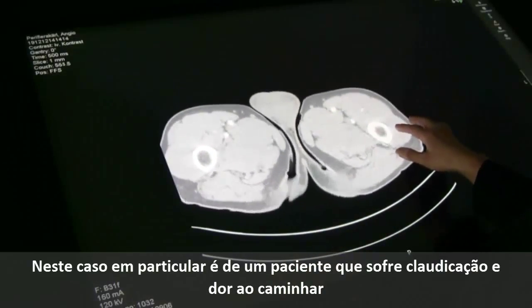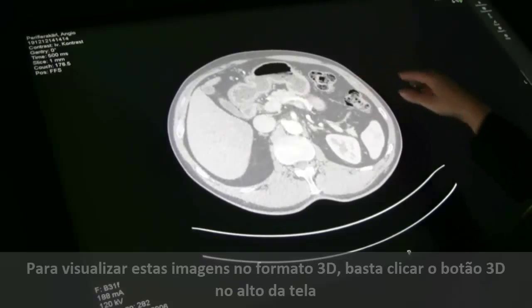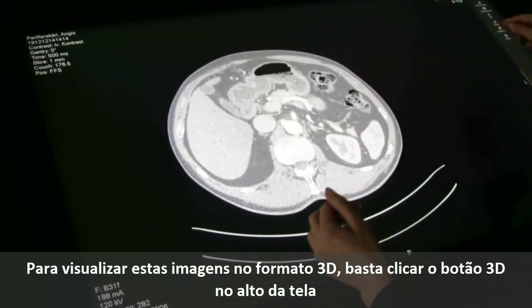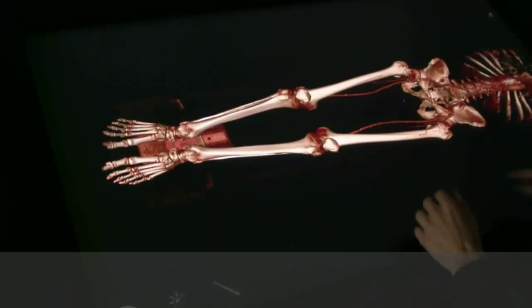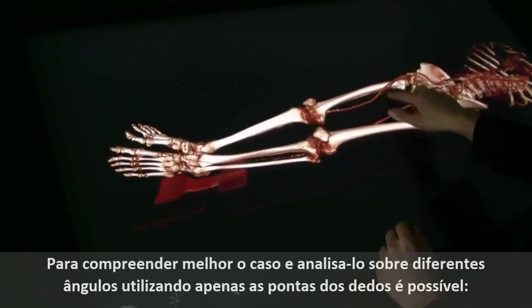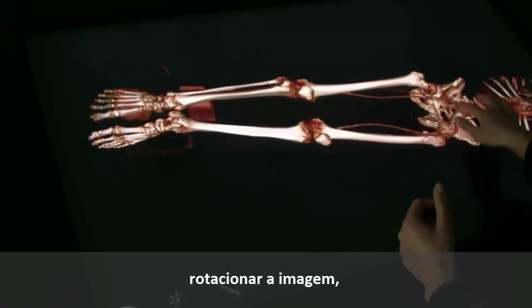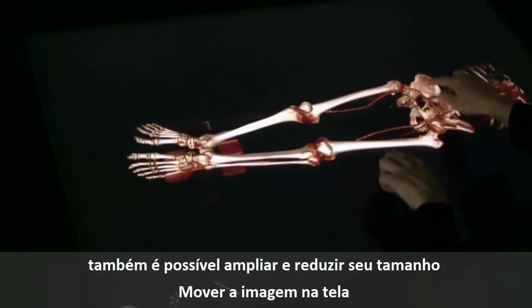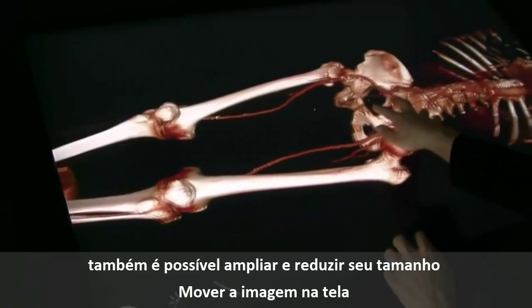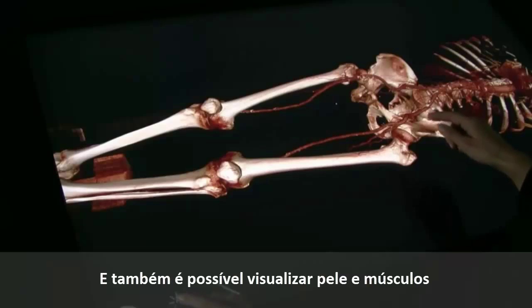This particular case is a patient that feels pain while walking and has probably a stenosis in the peripheral arteries. To view the images in a 3D volume, you just press the 3D button. Within a few seconds, the computer has created a volume which you can interact with in real time. To gain sufficient understanding of the anatomy, you can rotate the volume like this. You can zoom in and zoom out. You can move the volume. And you can add and remove layers of skin and muscle.